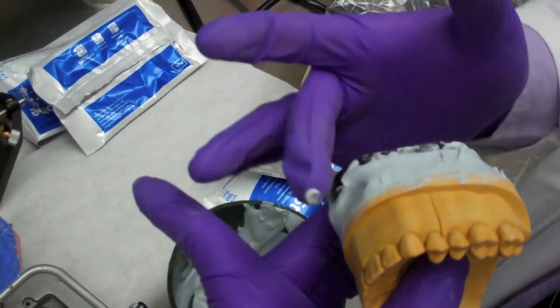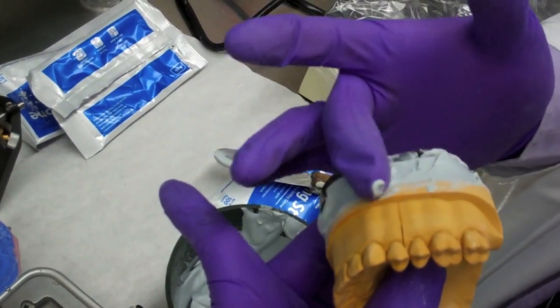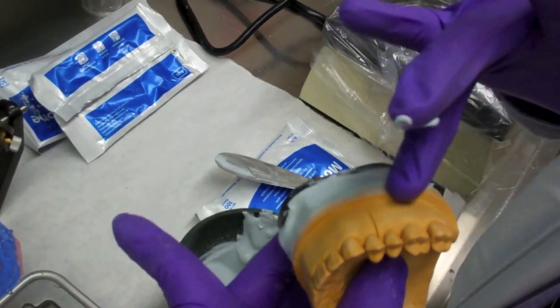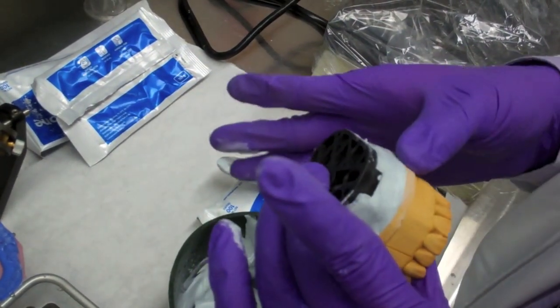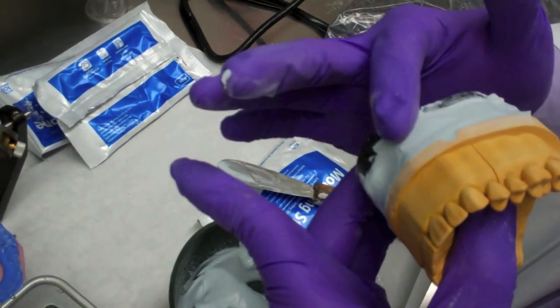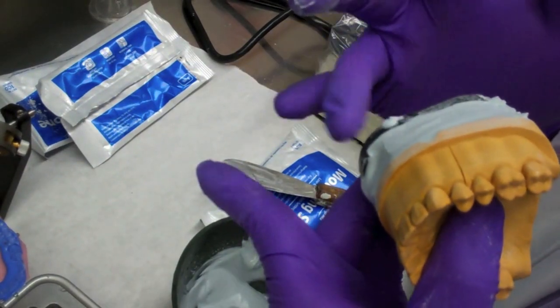It is important to remember that everything done in the lab needs to be neat and clean. Once filling the voids, you may use your finger or an instrument to clean the borders of the plate and of the model.